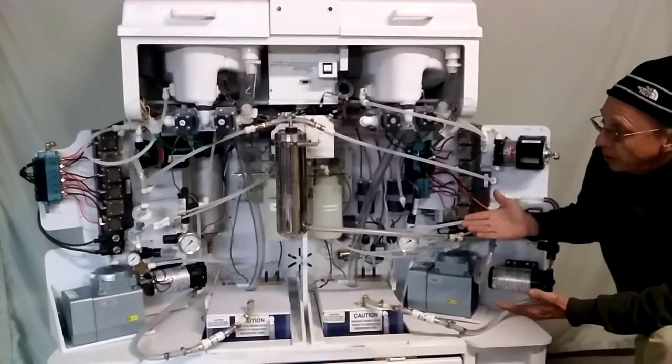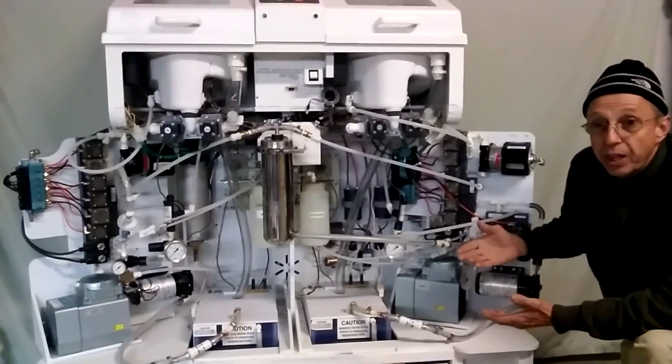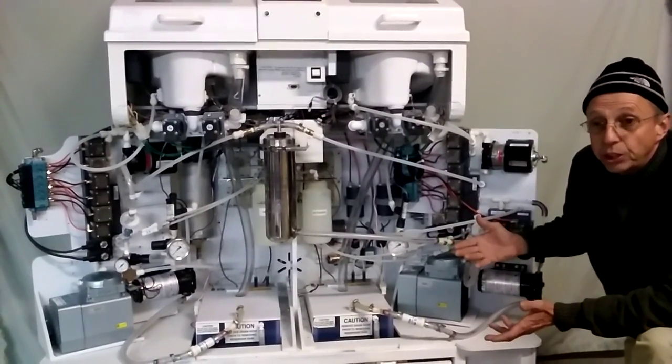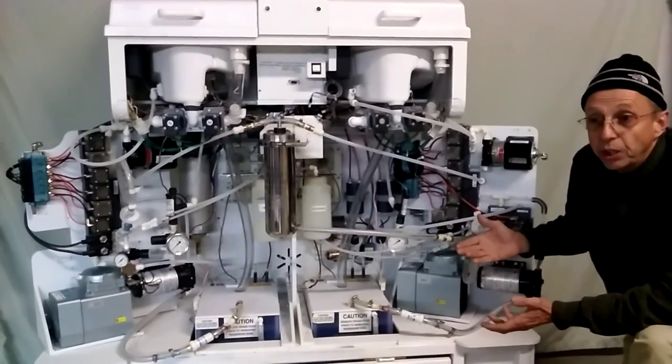And that way we feel that you're going to learn the theory of operation better. And the better you learn the theory of operation, the better you'll be able to troubleshoot the unit.